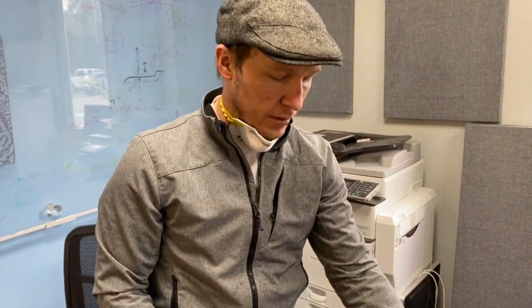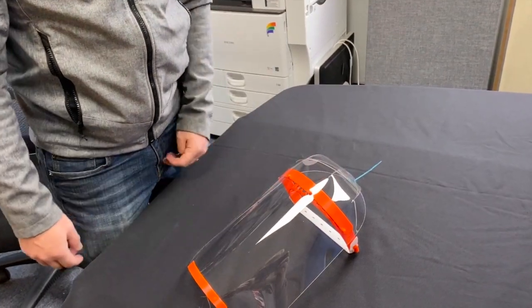You can clip the top piece if you'd like to or you can leave it on there if you want a little bit extra decoration.